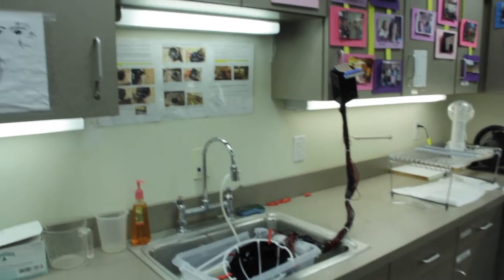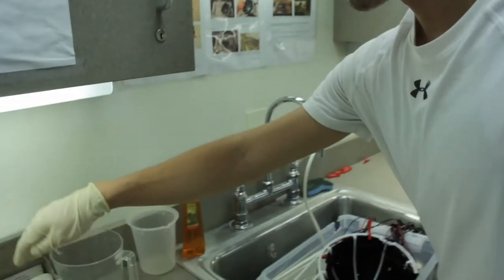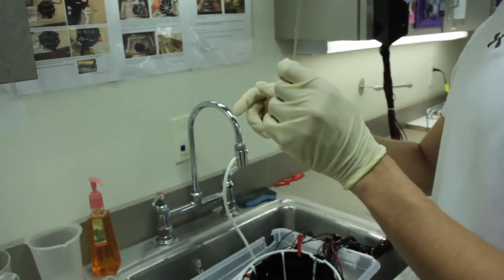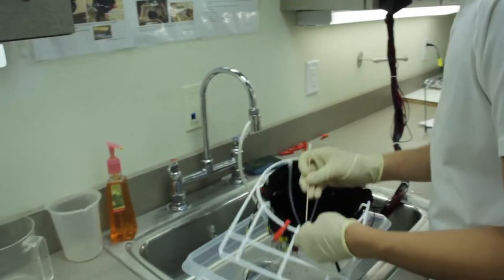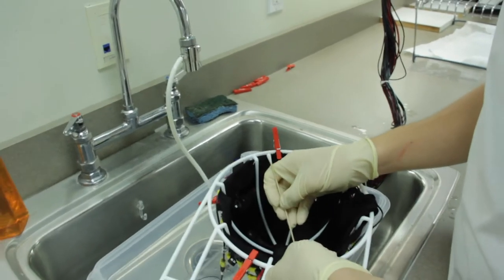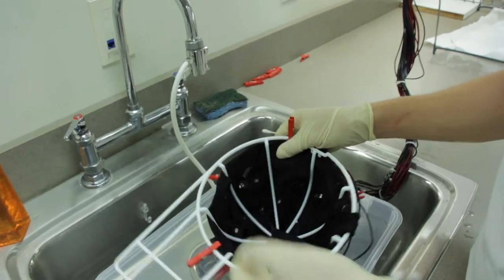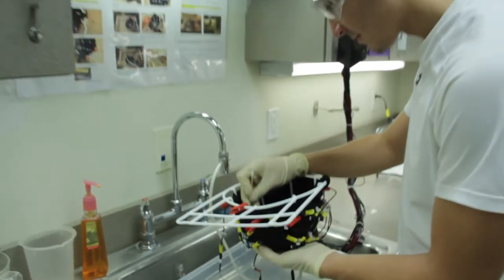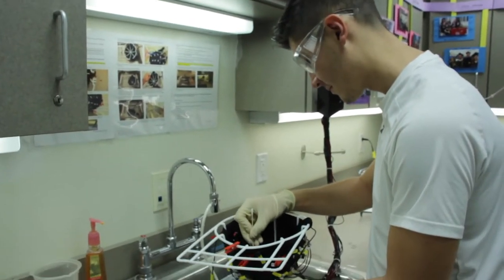Now you are ready for the inspector to inspect the cap. Take a wooden cotton swab and with the wooden end, go through each electrode hole to make sure they are without gel. Inspect away!